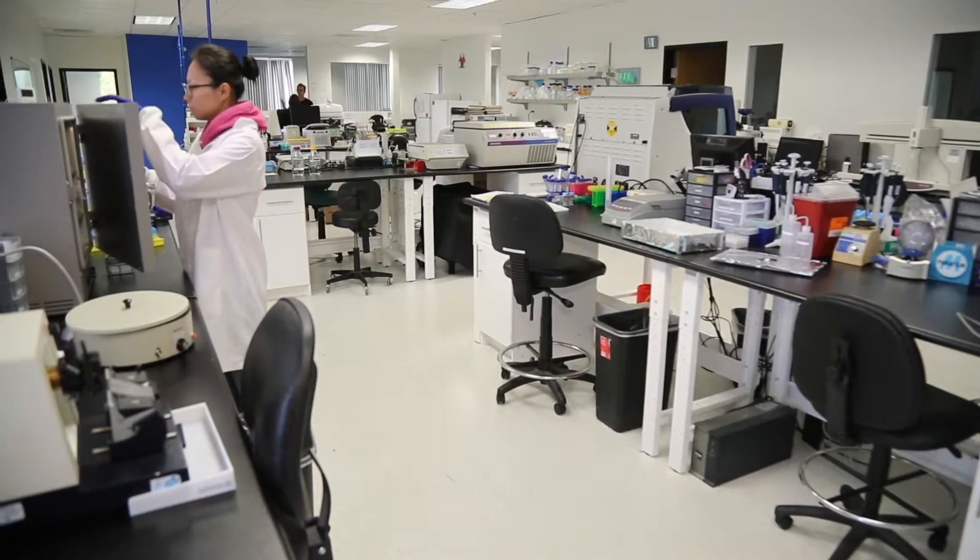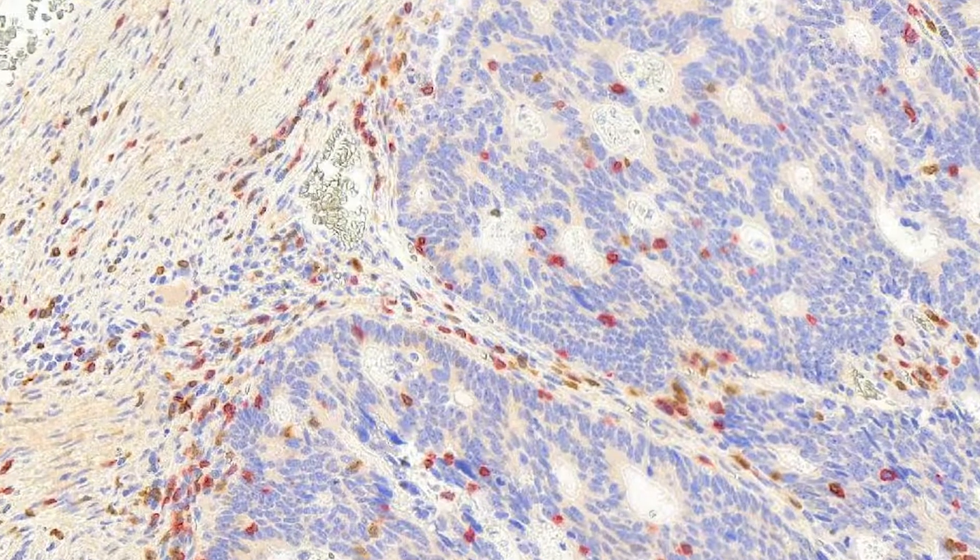Working on thousands of tissue samples a year, Dr. Weston is finding that researchers are seeing accurate and reproducible results. Things that would have taken us several months to do a few years ago, we can now do in a few hours, less than a day.